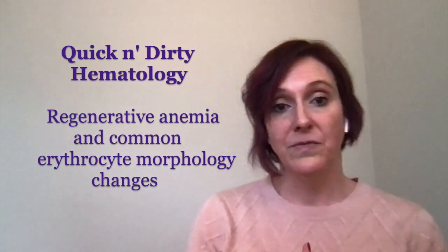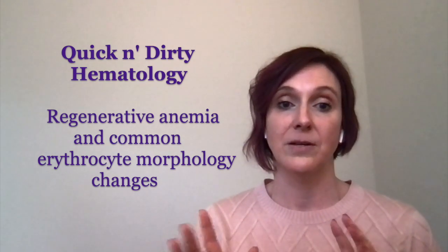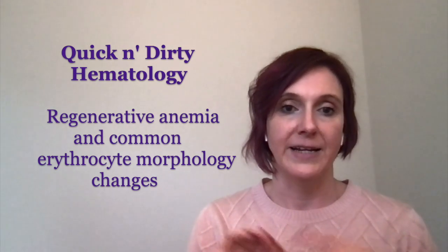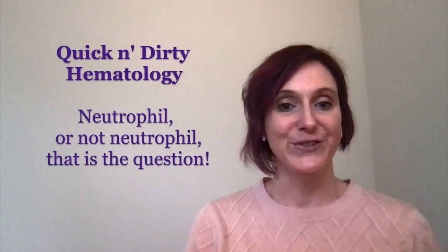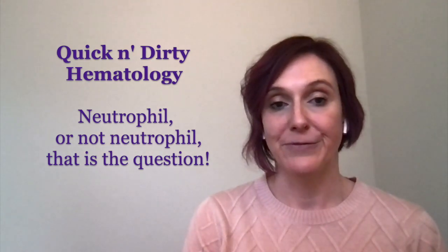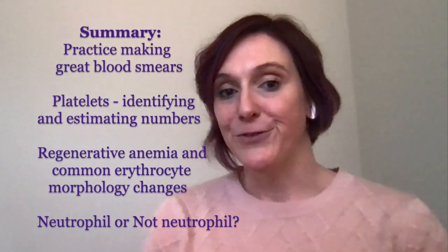We have reviewed our erythrocytes and what we look for in a regenerative anemia, including our polychromatophils. And then we touched on some of our hot topics, which are spheres, schistocytes, as well as our Heinz bodies, eccentrocytes, oxidative change. In white cells, our theme was to neutrophil or not to neutrophil, and how to sort of approach it, your discussions with clients, and going forward from there. Stuff that you're going to need on that daily basis to intervene more quickly. Don't forget to use us.